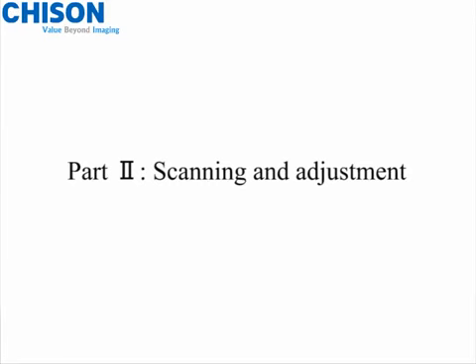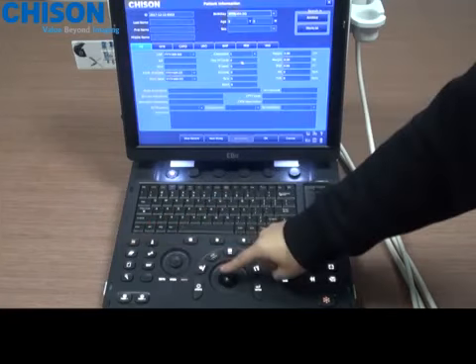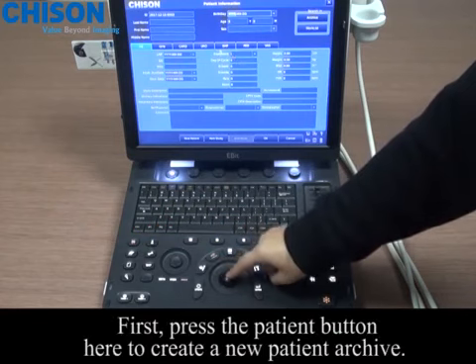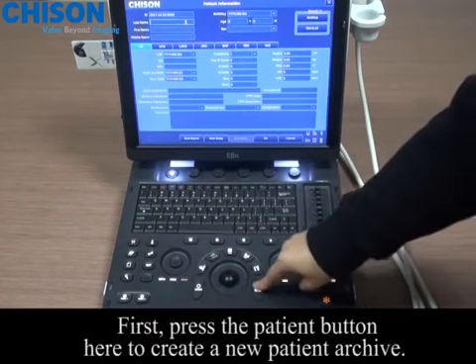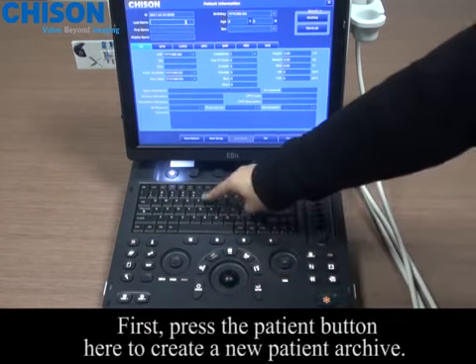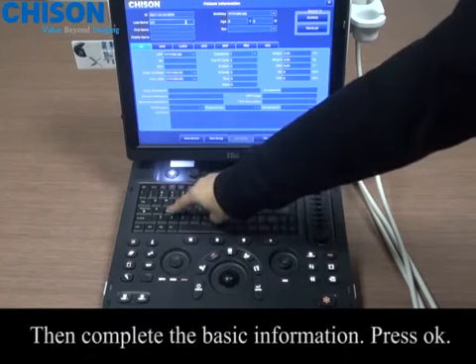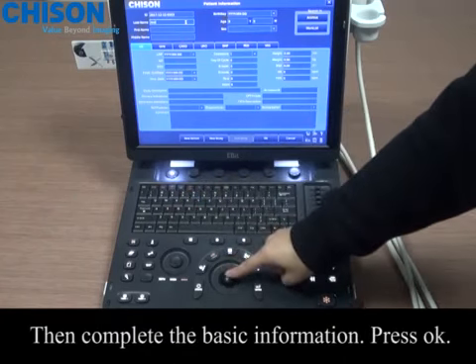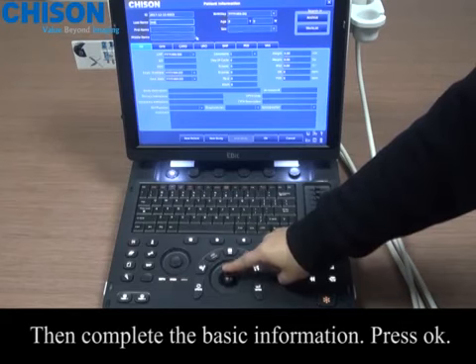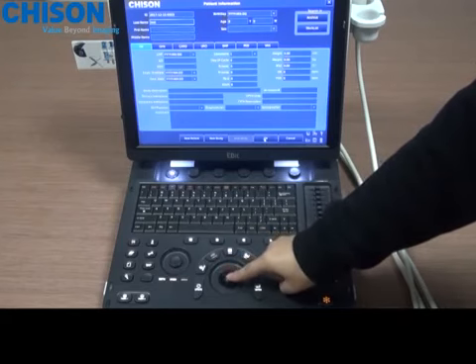Part 2: Scanning and adjustment. First, press the patient button here to create a new patient archive. Then complete the basic information. Press OK.